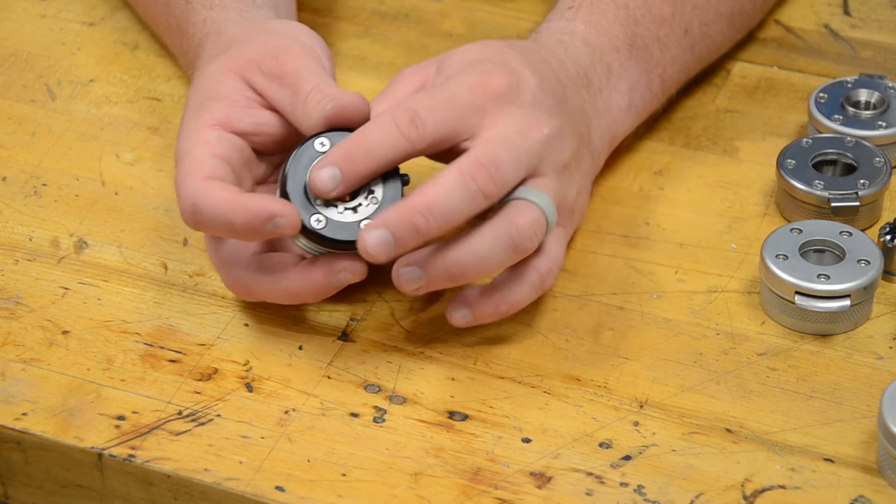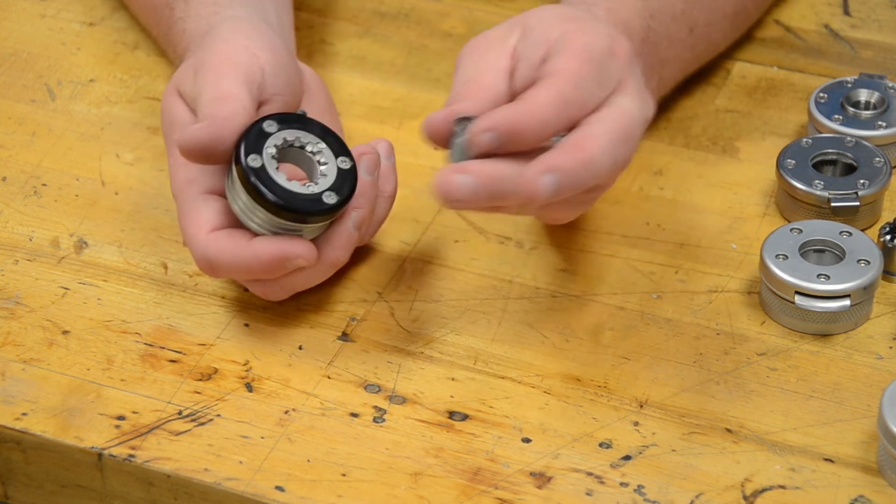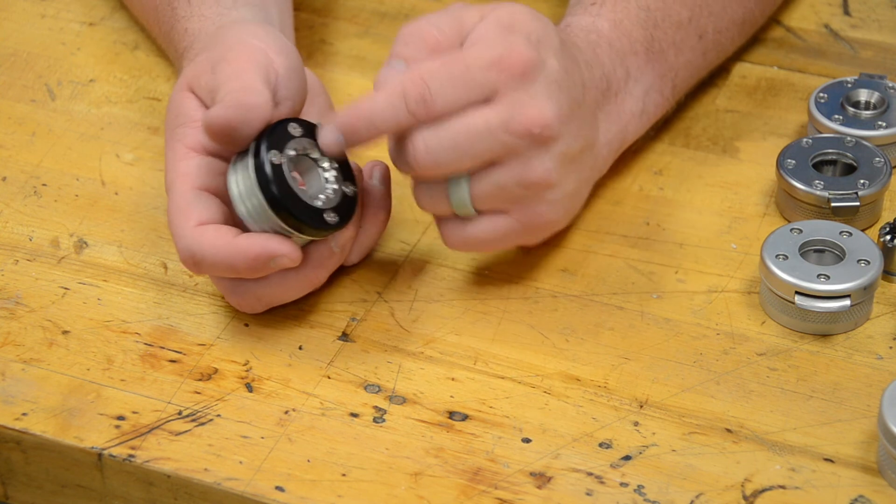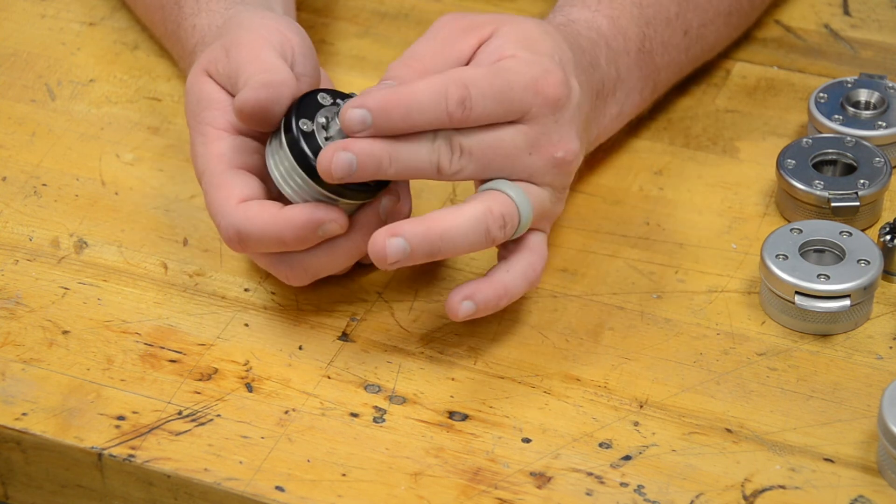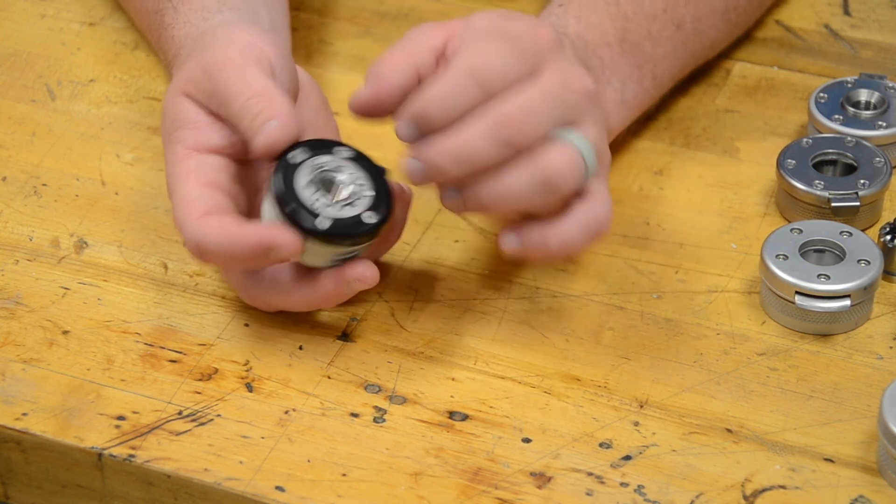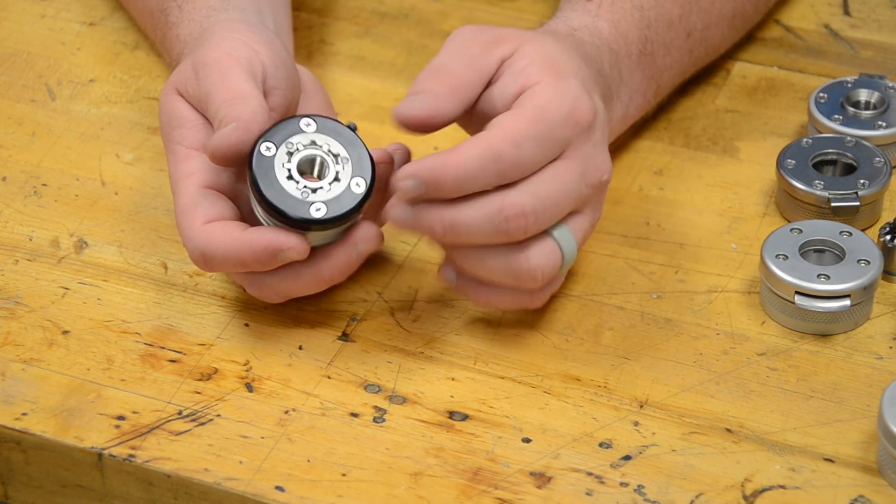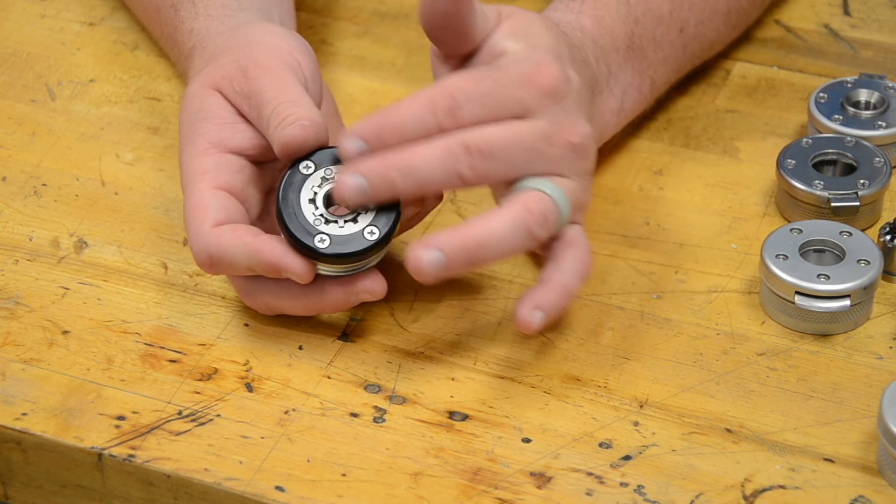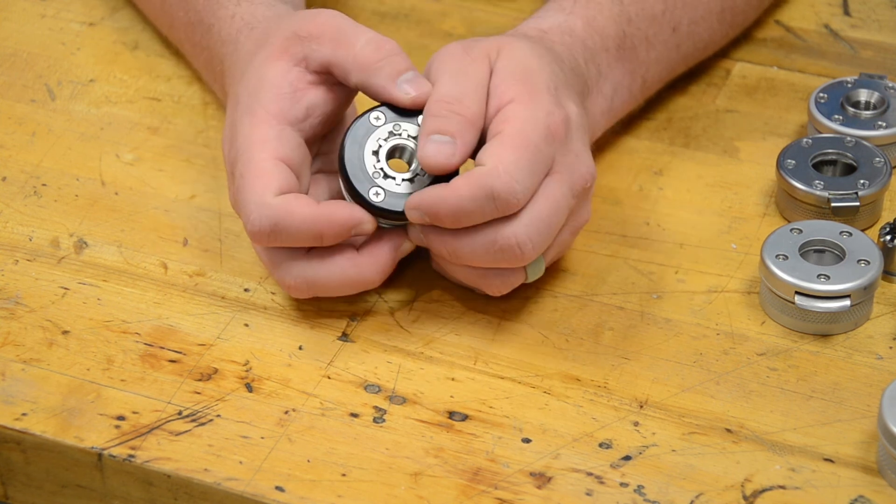With this, it also comes with an add-on kit that allows you to put a friction insert on the top of this, which is just an O-ring that's allowed to compress between the devices, but it does give you some friction control rotation as well so you can get both with the Omega wrist.